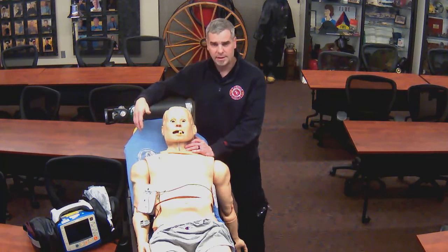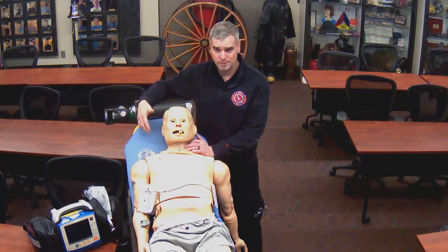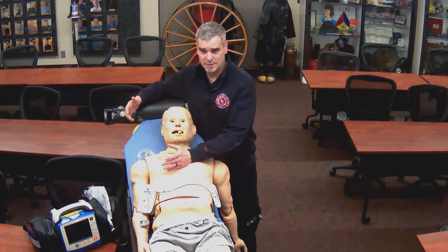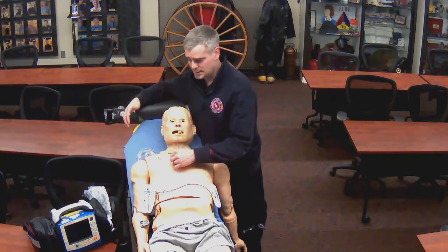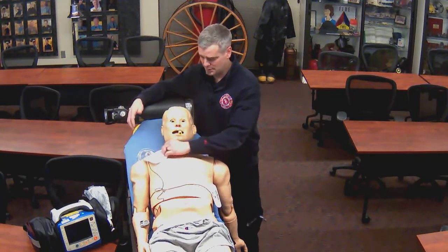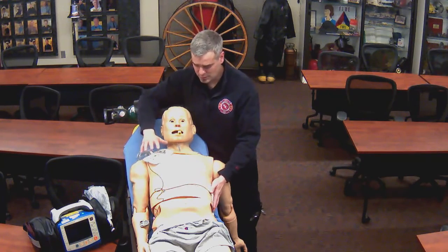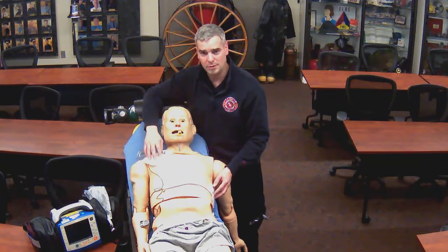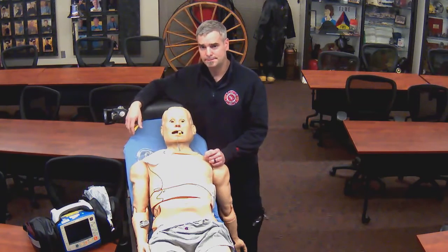So if your patient's heart rate is in the 30s and 40s, and they are unstable, do not hesitate to get out these patches. These patches are very expensive, but that should never determine how you treat your patient. If the patient's unstable, get the patches out, put them on their chest, and we'll start doing the pacing function of the monitor. Patches go in place just like they do for synchronized cardioversion, just like they do for defibrillation. You follow the diagram, high on the right, low on the left. Hook it to the monitor via the regular cables setup. Now we'll go into the details on the monitor.